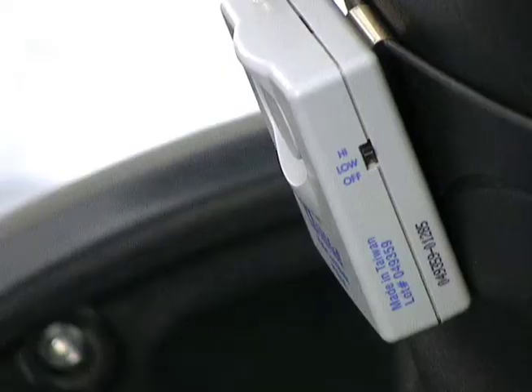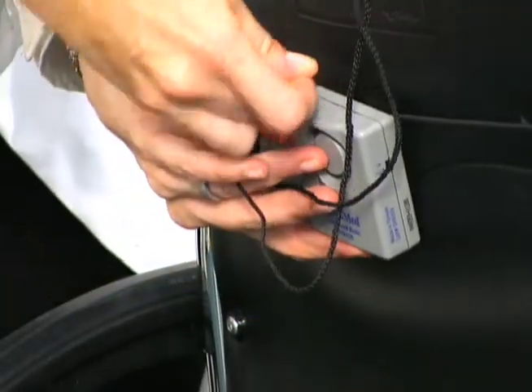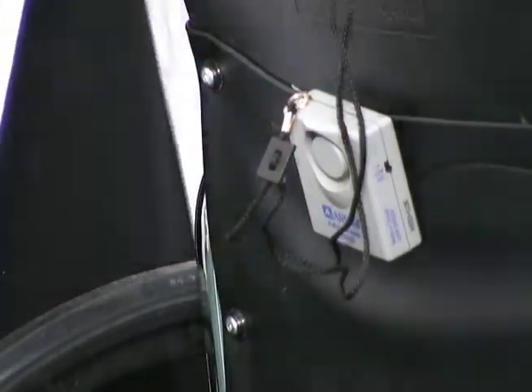To deactivate the alarm, move the selector to the off position. To reset the alarm, reinsert the pull pin and choose high or low. Always test the alarm before reusing to ensure that the alarm is on, properly functioning, and that the batteries are fully operational.